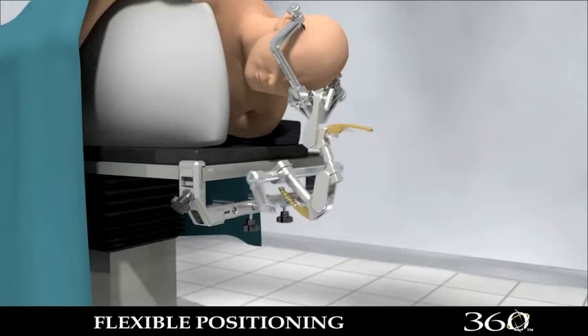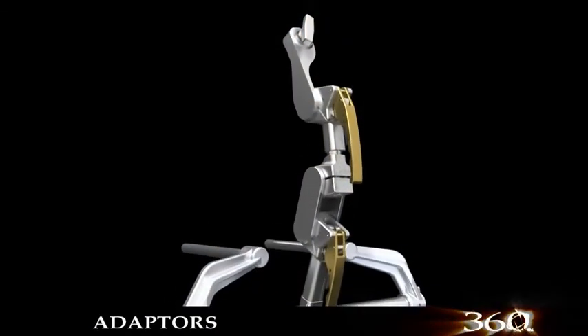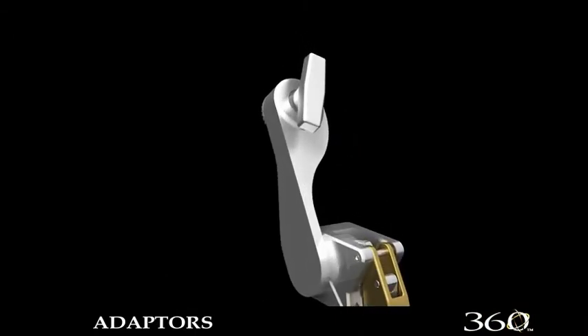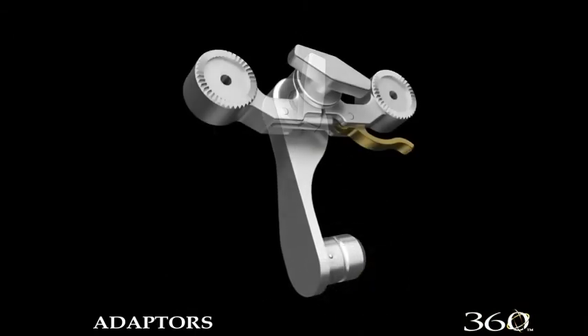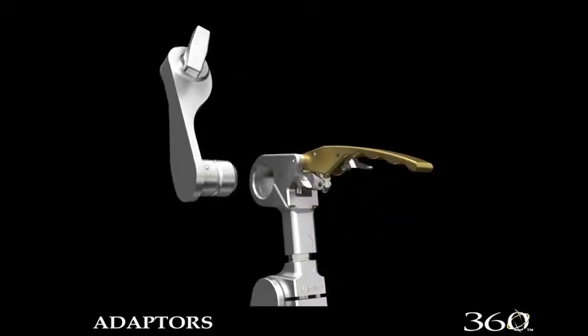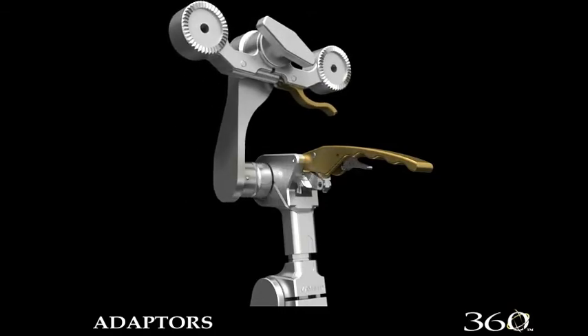Because of the added rotation of the components, the locking handles are always readily accessible. The Ultra 360 incorporates the swivel adapter as a standard component, including both a standard swivel and a tri-star swivel adapter, easily interchanged by opening the top handle and pushing the component out.